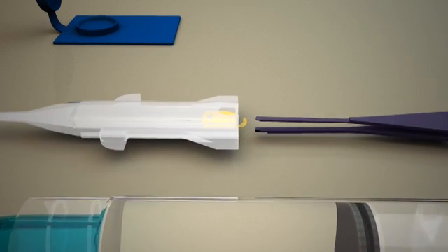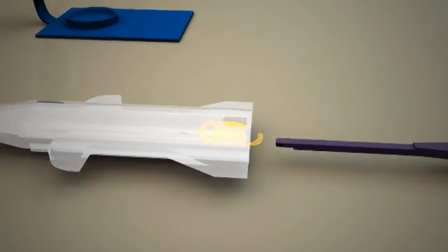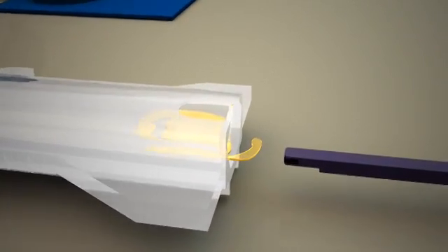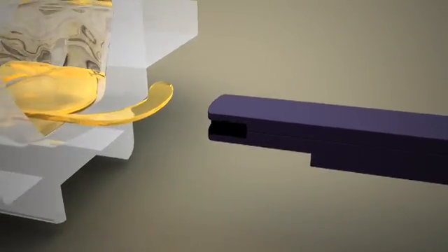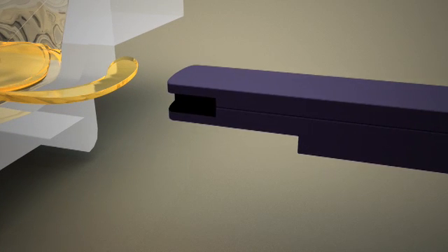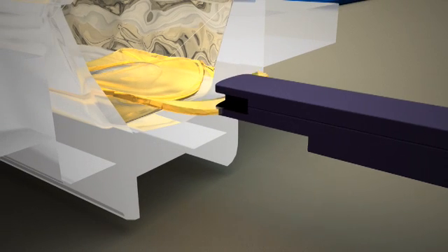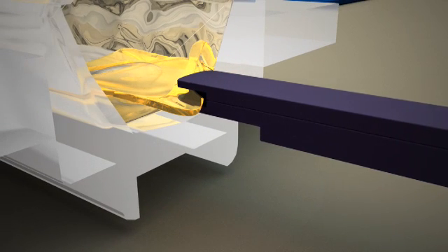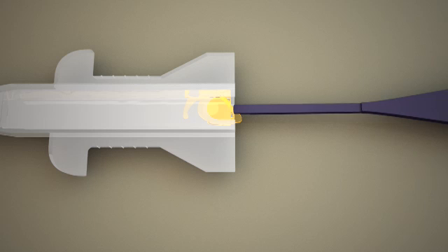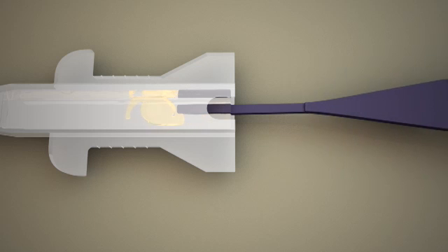Close the forceps and keep them closed for the next three steps. Use the groove at the distal end of the forceps to guide the trailing haptic into the cartridge and onto the optic. Keep the forceps closed and continue pushing.